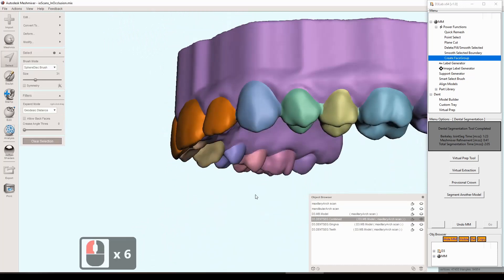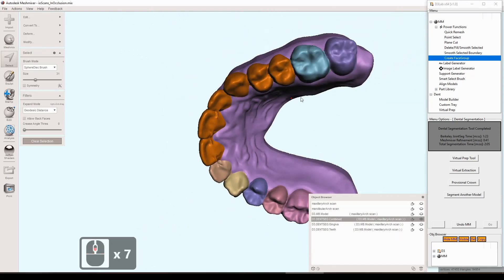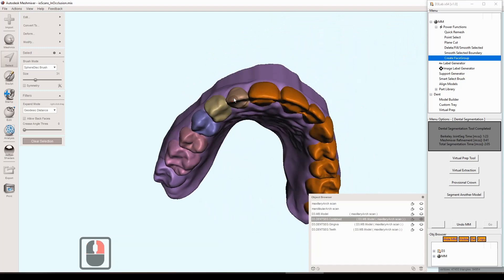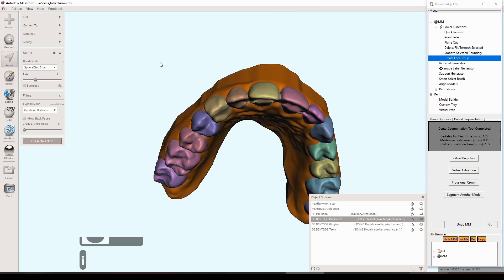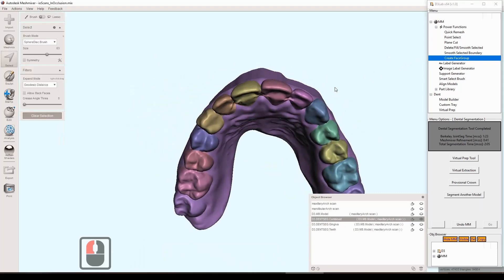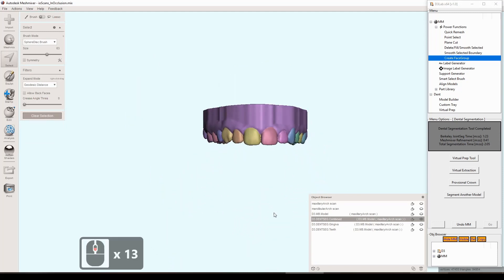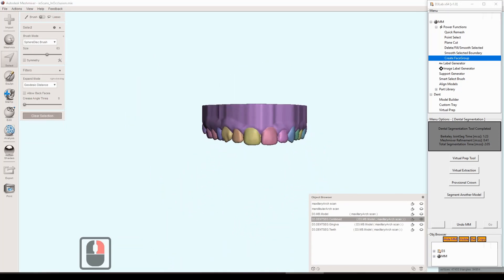Looking good, so going to get the rest of the teeth here selected. This is another good double check thing to do. Once everything's selected you can hit I and that will select everything else except for the teeth, and then create face group. So then you're a hundred percent sure that the only things remaining here are just the teeth that you had and the gingiva and the base of the model. Every once in a while there can be a couple little hidden triangles that maybe didn't get selected, and it can sometimes throw off some other things. So this is a really good way to ensure that all you have in terms of the face groups are the number of teeth, which is 14, plus one. That will do it every time.